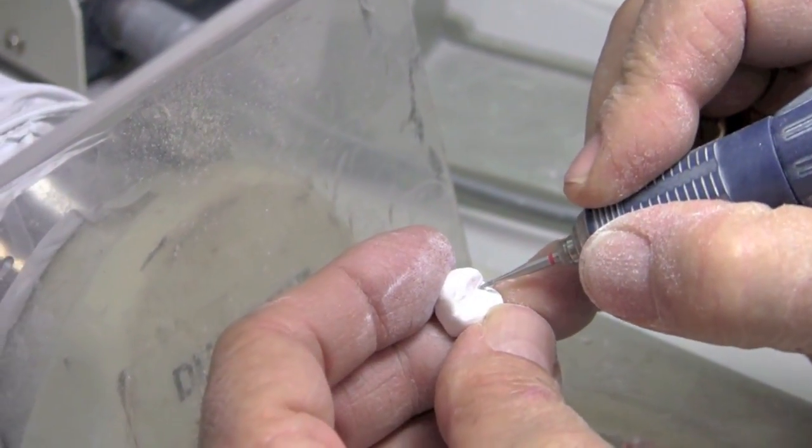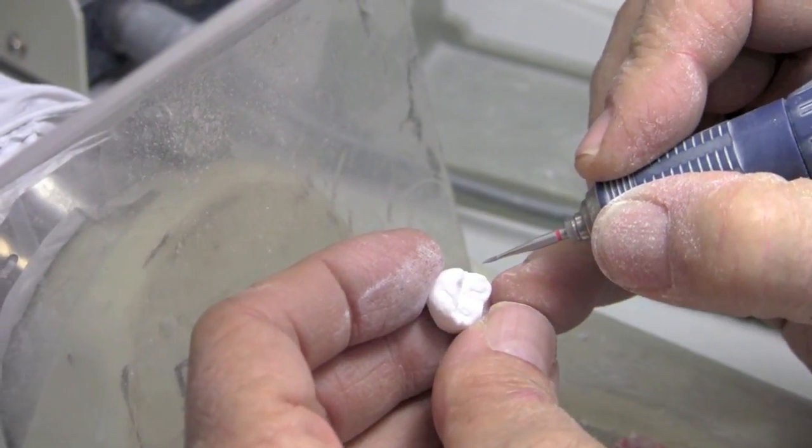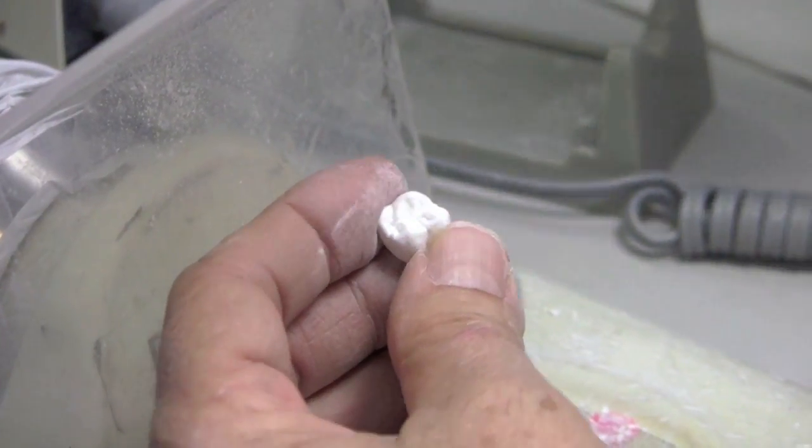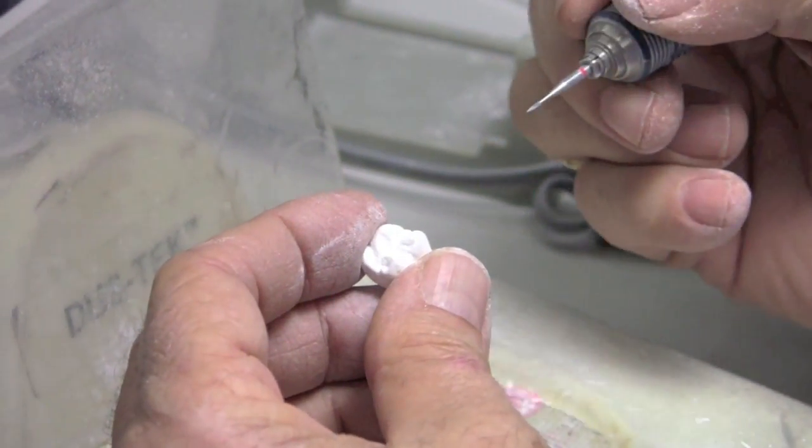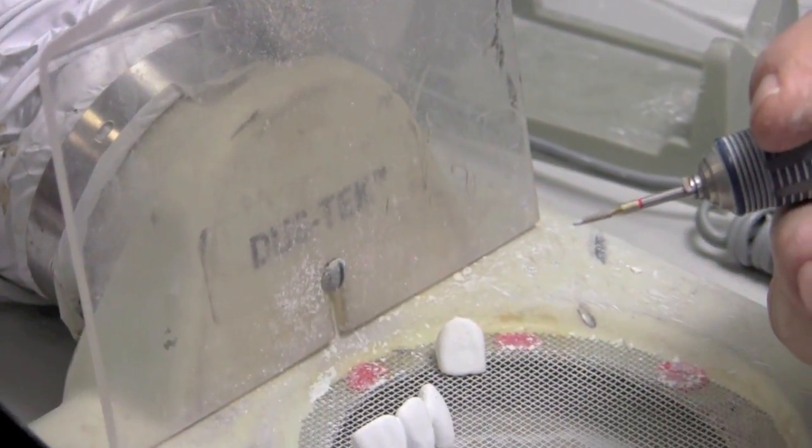So that's really all I really want to do. I mean, I got three nice pits developed here now. They're going to stain really well if that's what I want to do. Done. So that's what I use this little tool for. Now the Wagner tool does have diamonds, but I prefer this carbide. So the Wagner kit also includes an array of diamonds. Some quite pointy, quite nice.